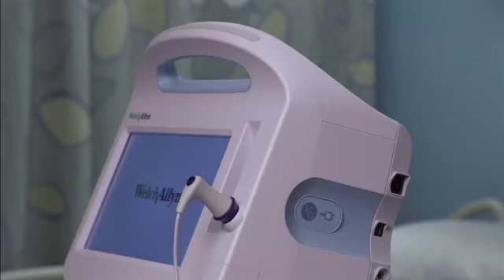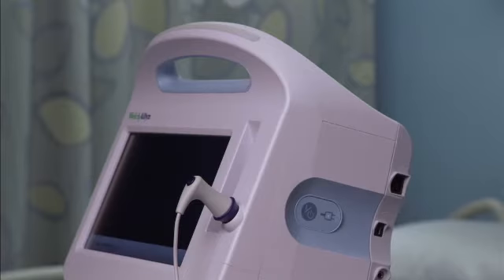To ensure patient safety, listen for two audible indicators: a piezo beeper and a speaker tone. And watch for visual alerts at power-up. Correct any system errors before using the monitor. Always observe the monitor during power-up. If any display fails to illuminate properly or if an error code displays, inform qualified service personnel immediately, or call Welch Allyn customer service or technical support. Do not use the monitor until the problem is corrected.